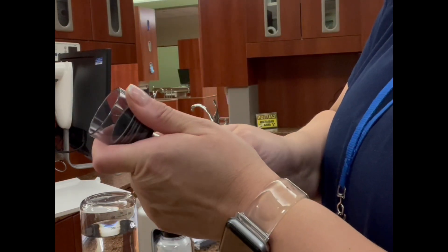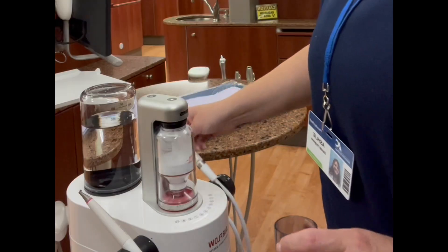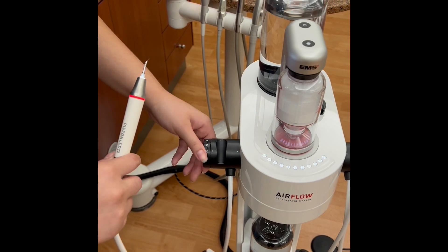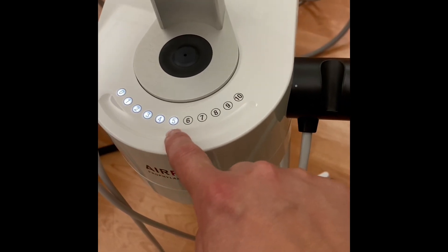You can carefully remove the cover by wiggling it to loosen, then carefully lift the cap off. The water flow is adjusted by using the knob on the side. Power levels can be adjusted by using the touch screen.